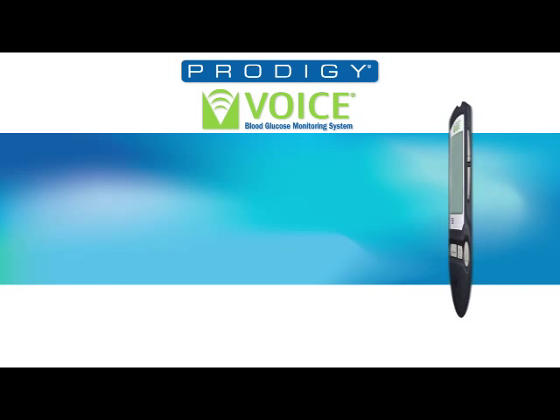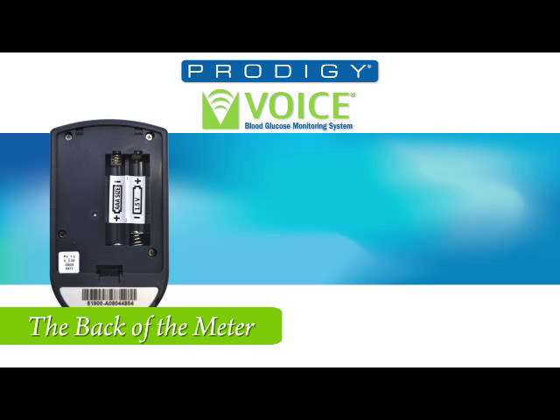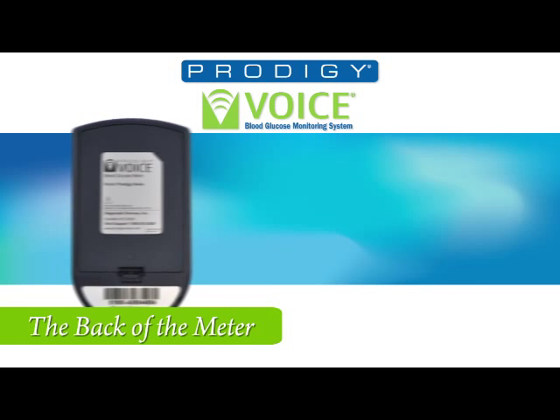Let's take a look at the back. You will find the buckle, and by pressing up, you'll open to the battery compartment. Start in the back of the meter by inserting the batteries. The molded end symbols on the lid ensures the batteries are oriented properly. With the batteries installed, close the back plate.